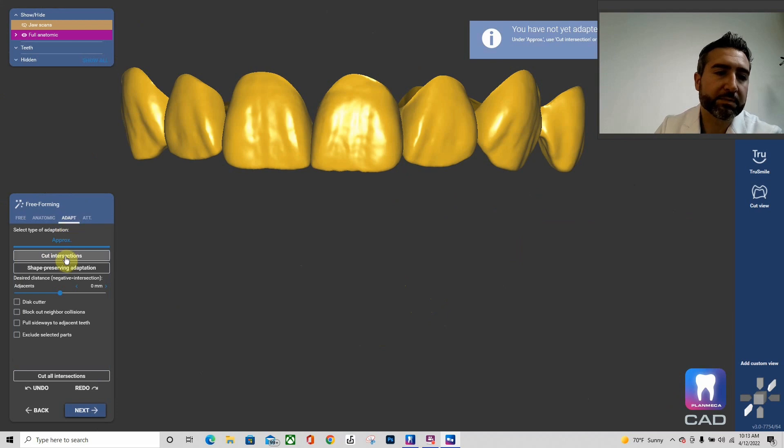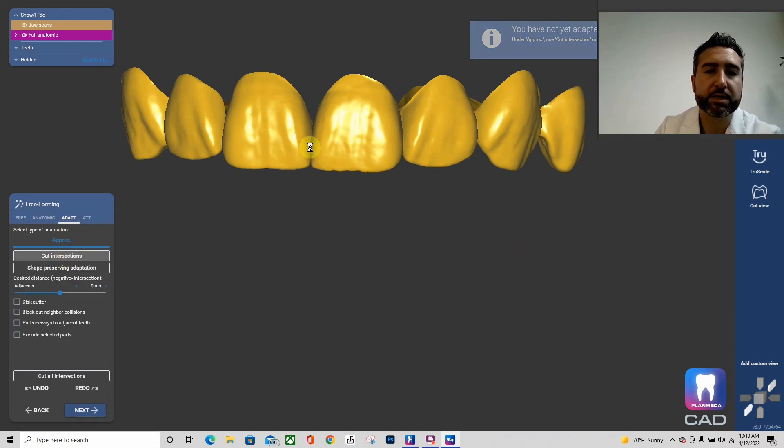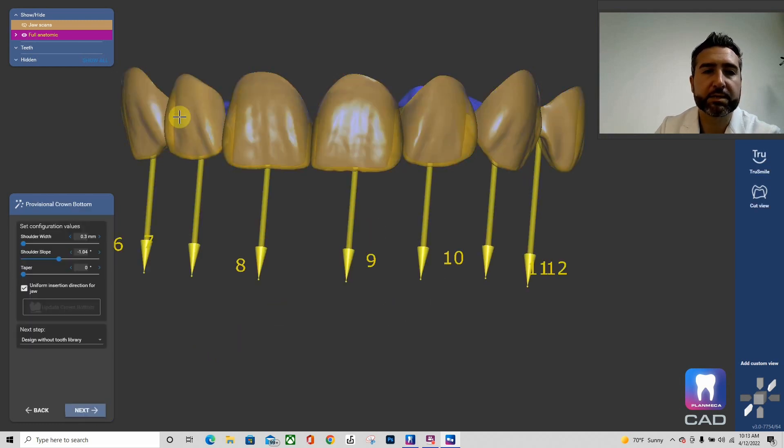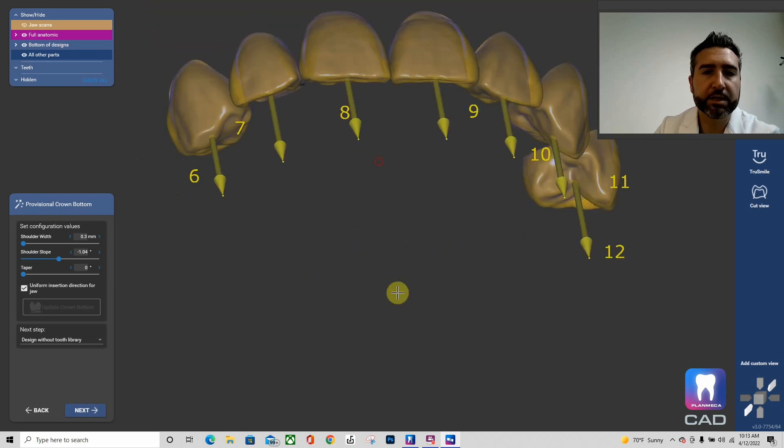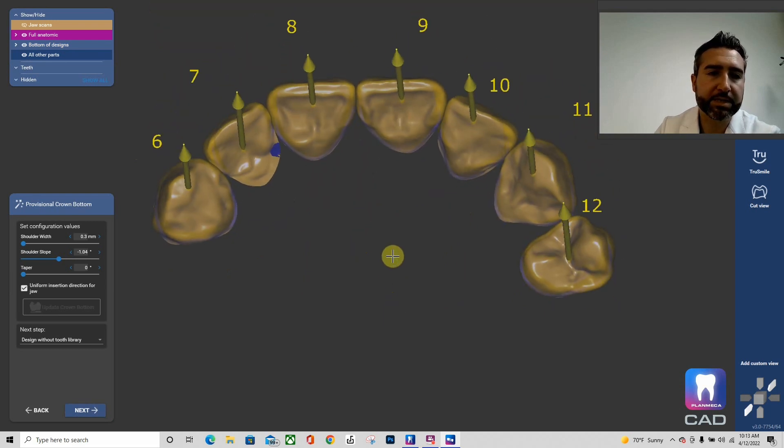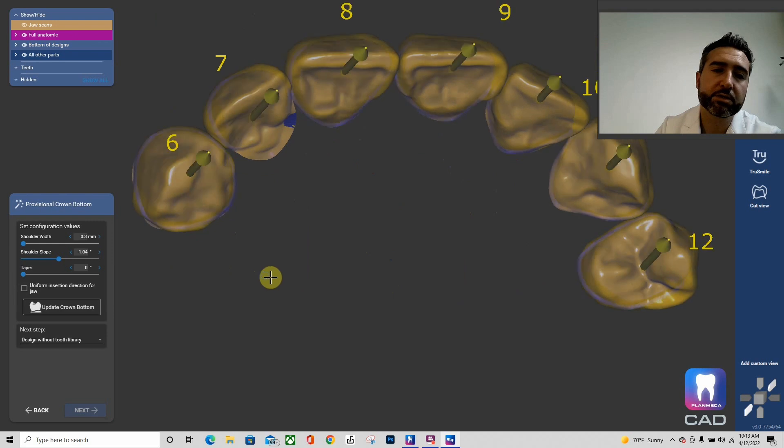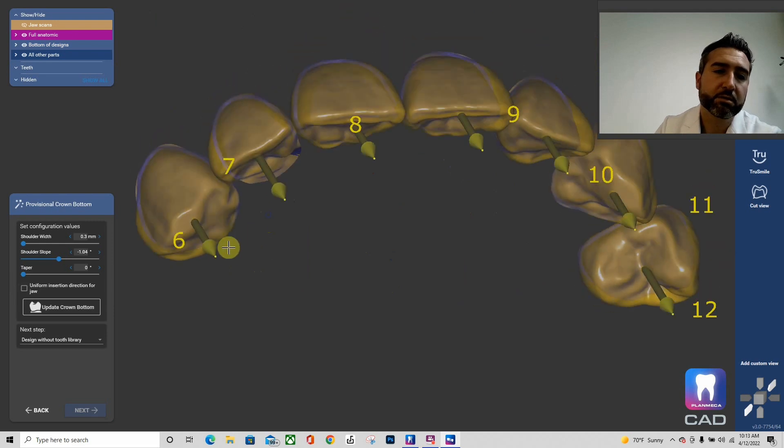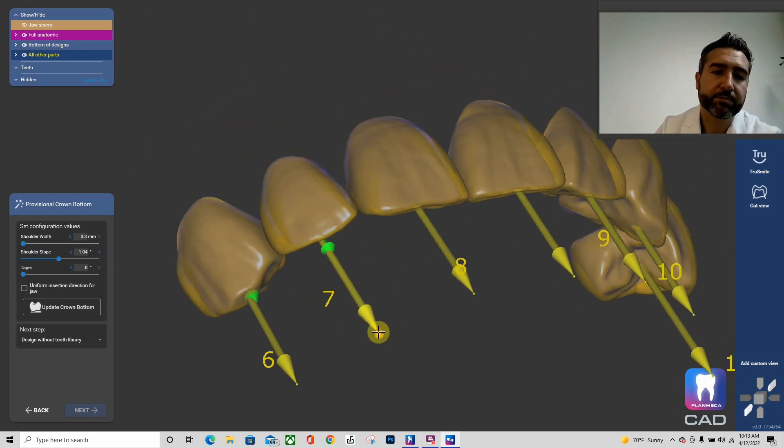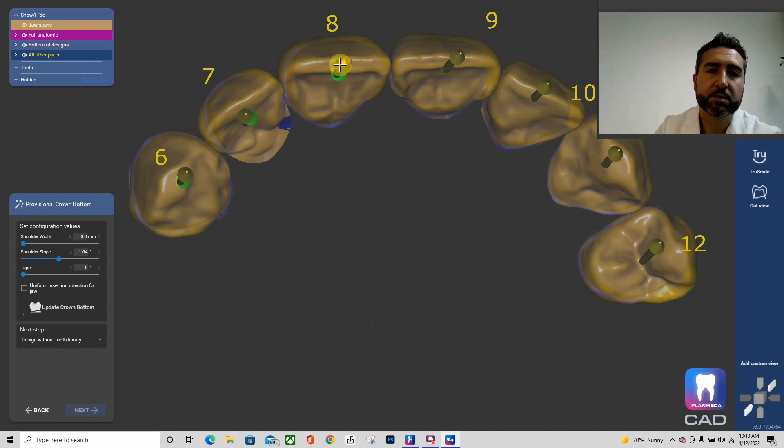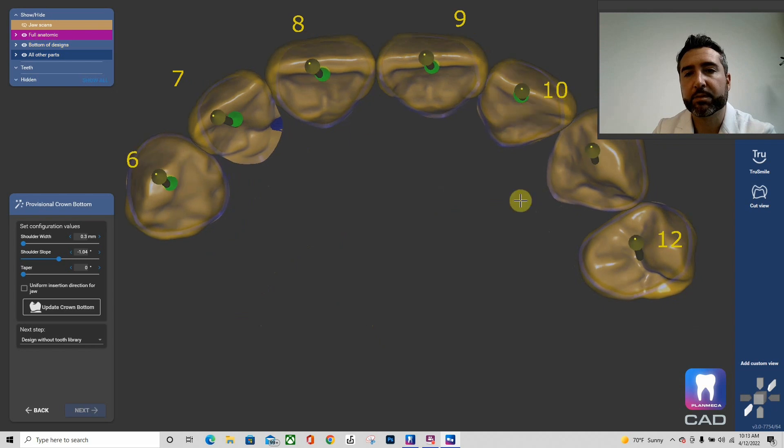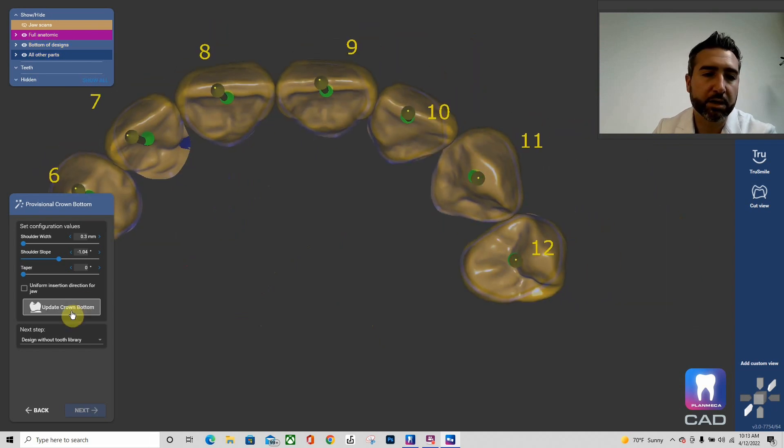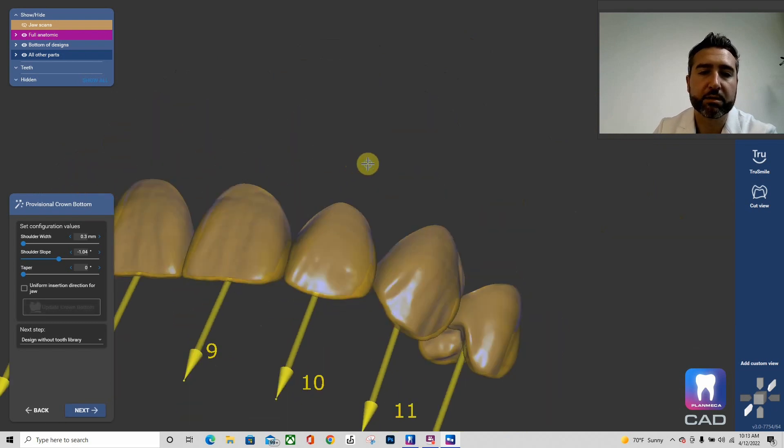That's it. So now we have the ability to freeform. I don't need to freeform anything because I like the proposal. My interproximals, I'm going to go ahead and cut intersections so that I have good proximal contacts on my distals. And then here's where we could basically change the path of insertion to individual insertion, so that we maximize the conservative nature of the prep to each individual tooth rather than a coincident insertion path.